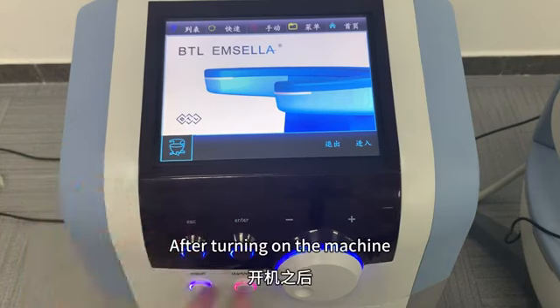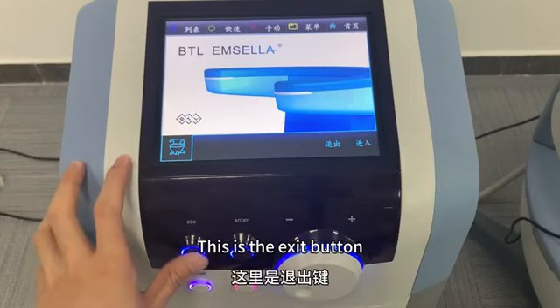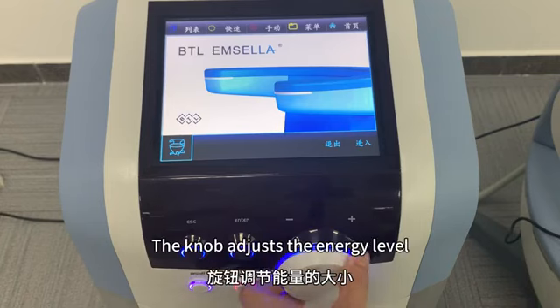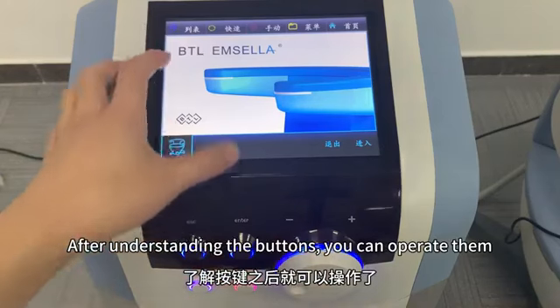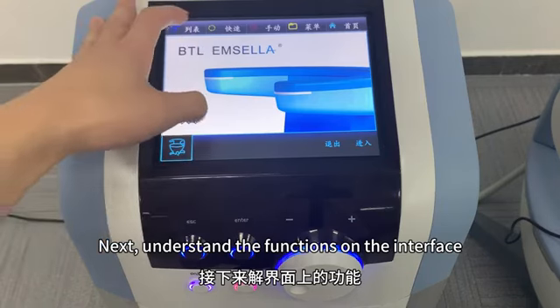After turning on the machine, let's first understand the operation of the buttons. This is the exit button. This is the enter button. This is the start and stop button. The knob adjusts the energy level. After understanding the buttons, you can operate them. Next, understand the functions on the interface.